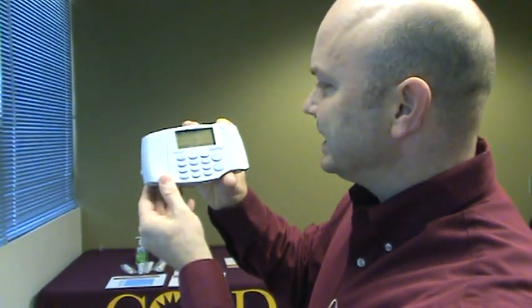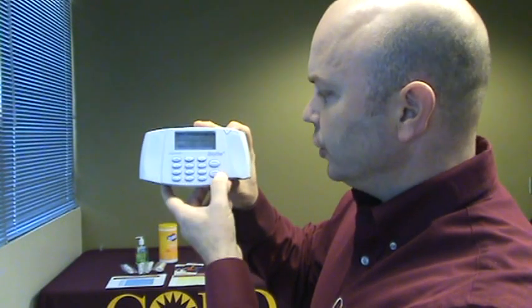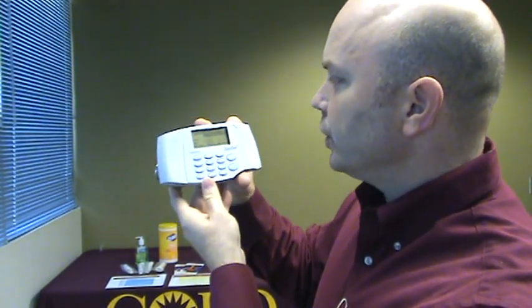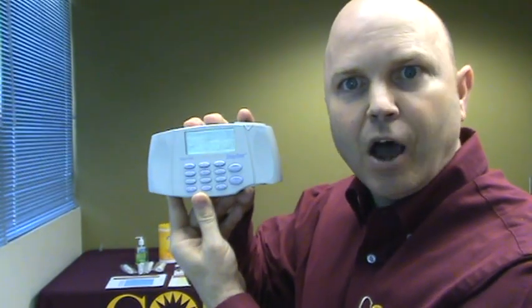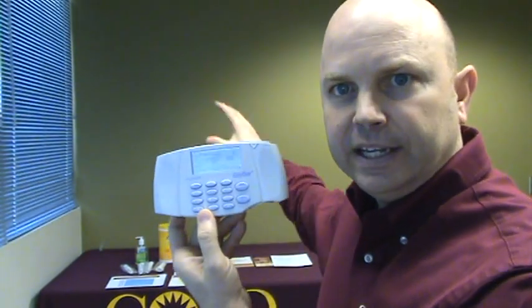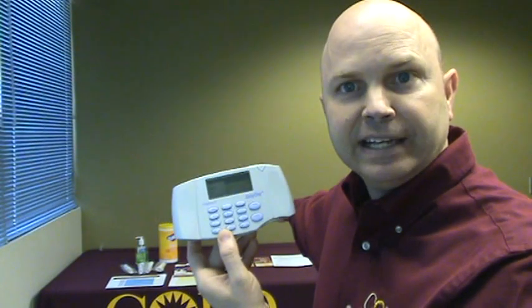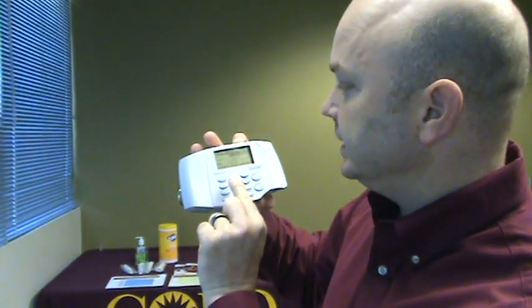You're going to get to select test and you want to enter new patient, so you're going to press enter. Then you go to the enter patient data screen. On the paperwork, there will be the patient's height, age, and gender category that you will look at in order to enter this data.